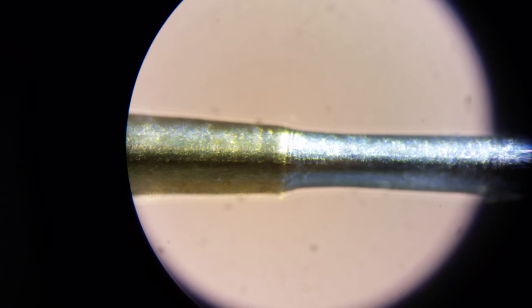And one other thing, I'm going to pause the video again real quick and we're going to zip up to the area where the transition from inside skin to outside skin occurred. So if you have a sensitivity to gross things, you might want to skip on and just go watch some other video from here.